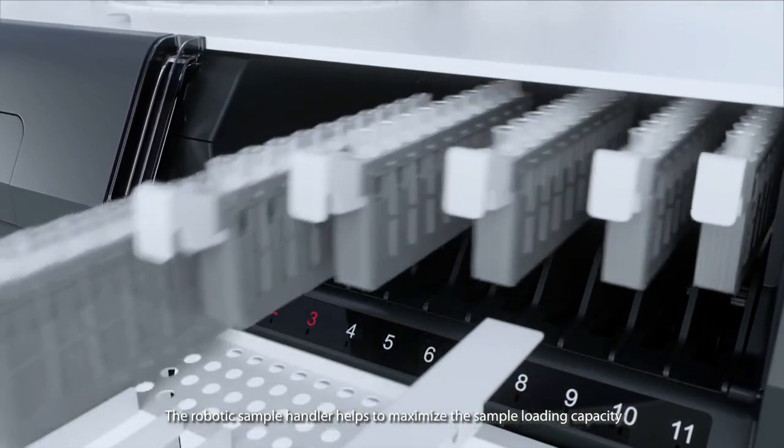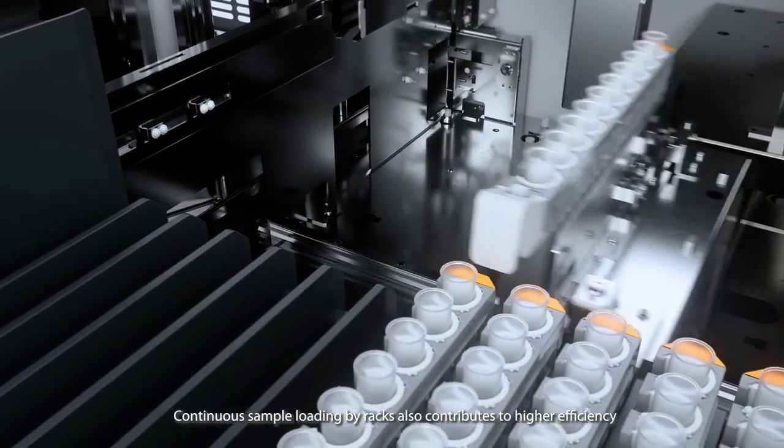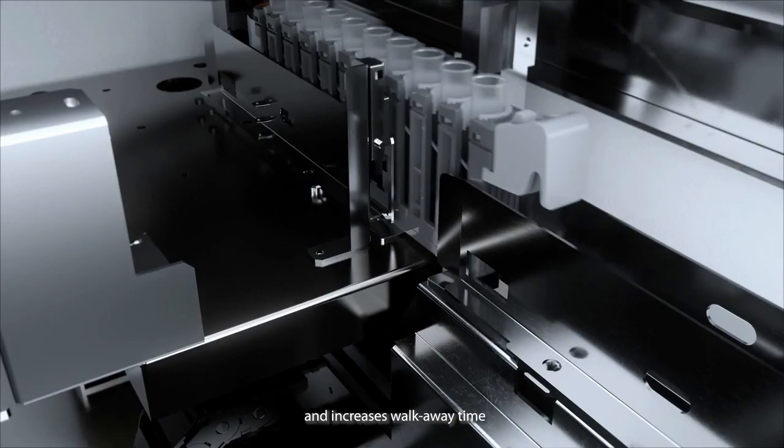The robotic sample handler helps to maximize the sample loading capacity. Continuous sample loading by racks also contributes to higher efficiency and increases walk-away time.